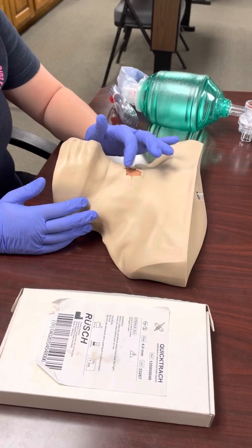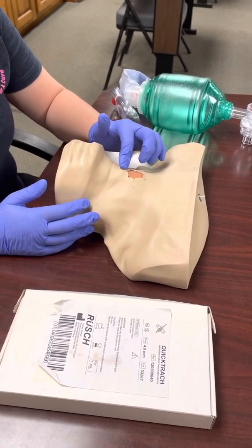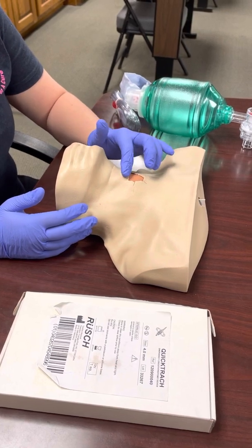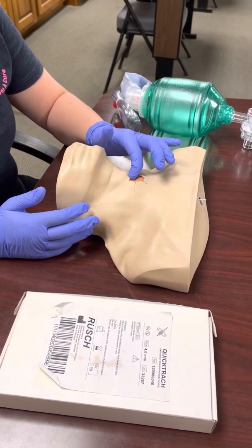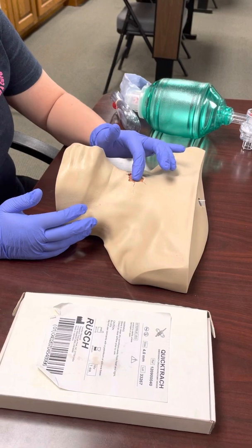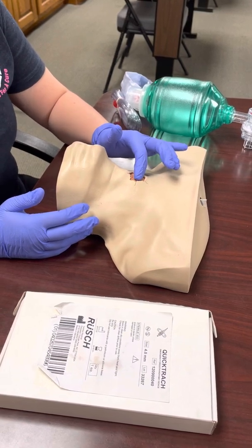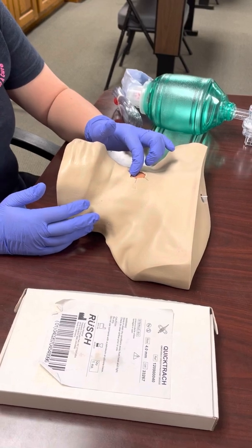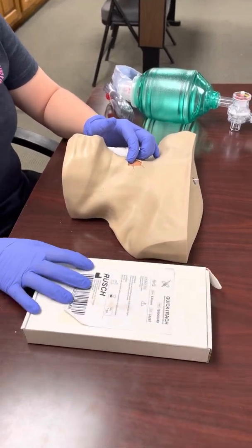It's still pretty tough to poke through so you will get some resistance, but it's going to be a lot easier than going through cartilage, and we don't want to damage any of these cartilages. It's really easy to find on yourself — just tilt your head back, feel your Adam's apple, feel a little divot below that, then feel the next hard ring, which is your cricoid cartilage. We're aiming for that divot in between the two cartilages.